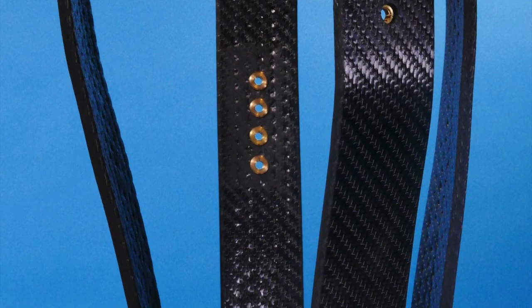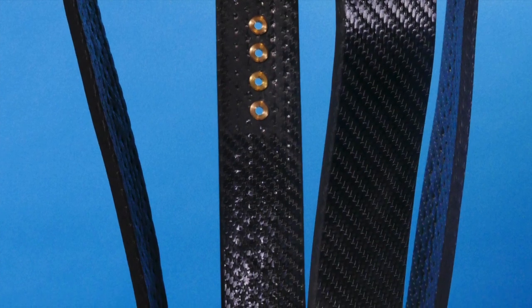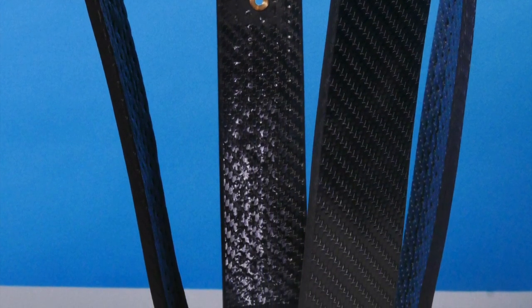The infinite socket is comprised of four carbon struts. Each of these struts can be heated and reshaped multiple times using a heat gun.